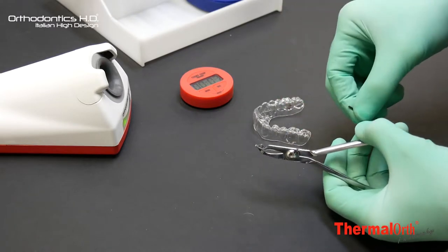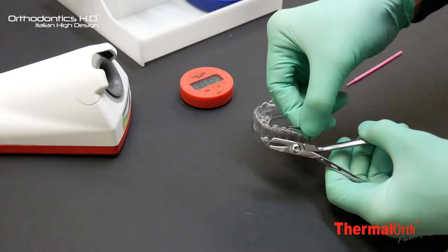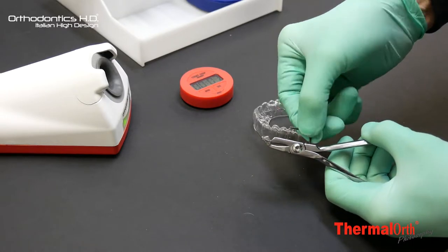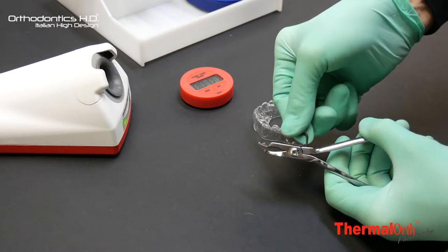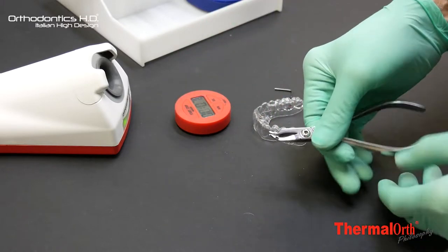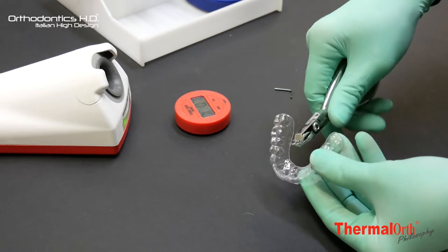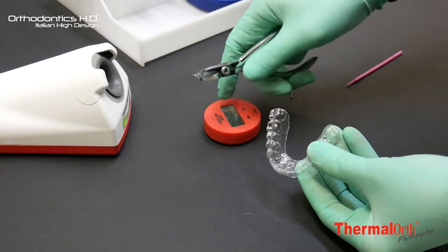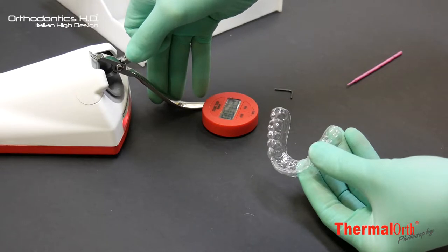Procedure: Act on the adjusting screw of the graduated scale to determine the thermoforming width. To get a bite which size is sufficiently large, we suggest to rotate the key clockwise for one full revolution, 360 degrees.